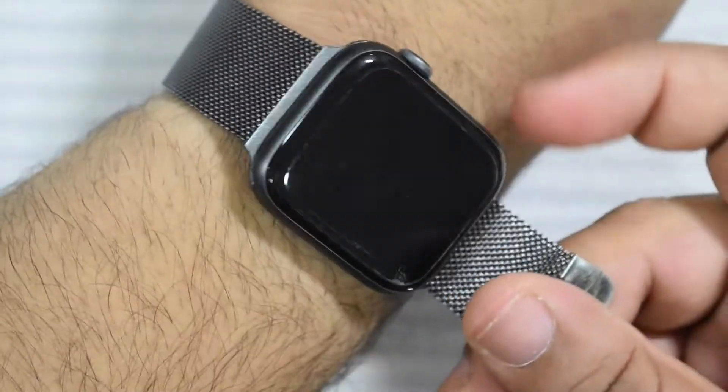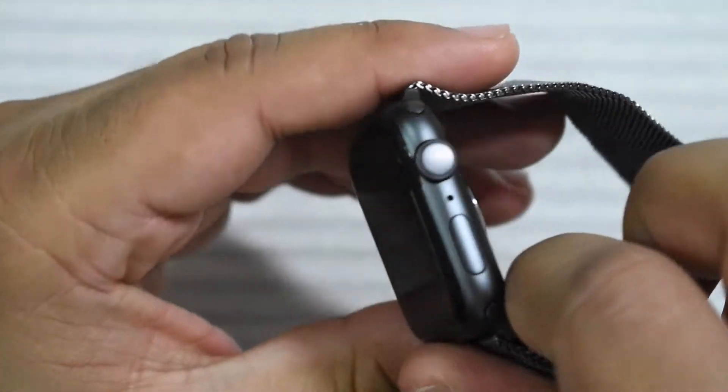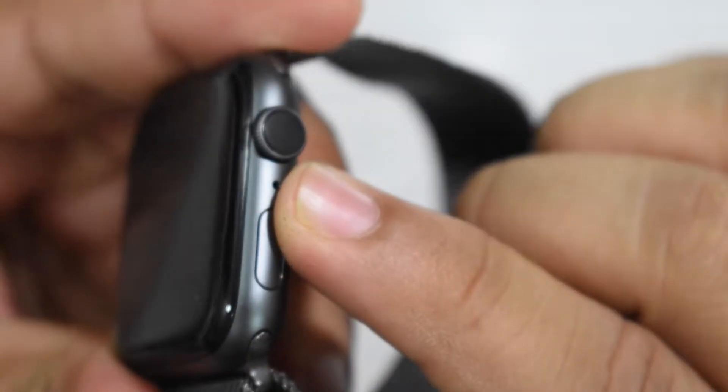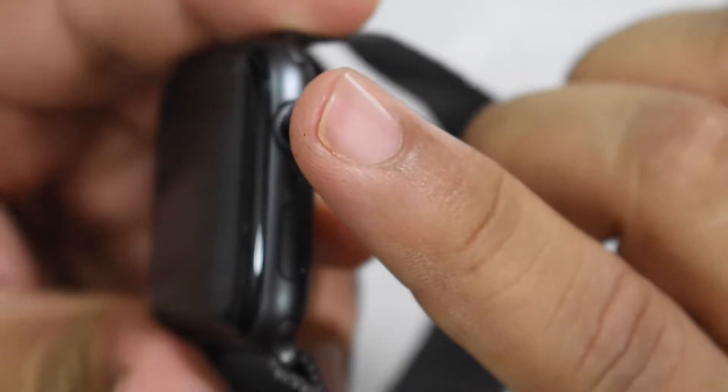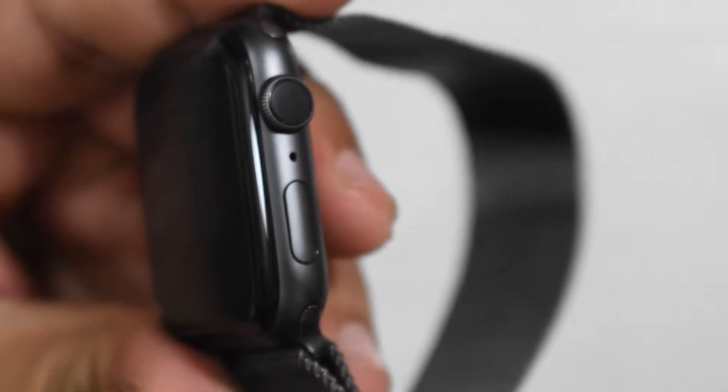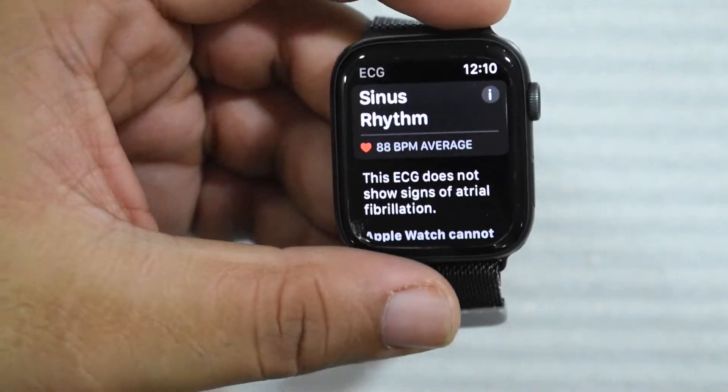Let me take off my watch to show you what I mean. You guys can see this black ring — I don't have the cellular model — but you want to cover your entire finger on this sensor because that's when it will get you an accurate reading. Otherwise it's going to say inconclusive because it didn't get a clear enough reading.